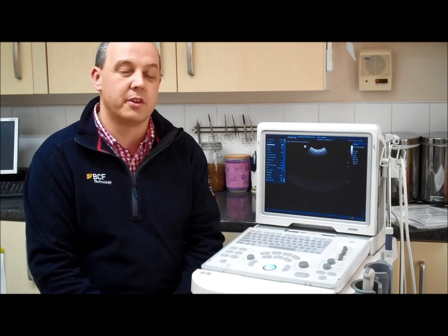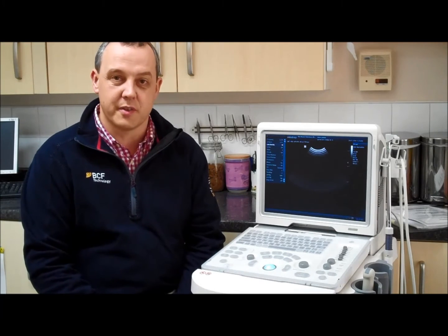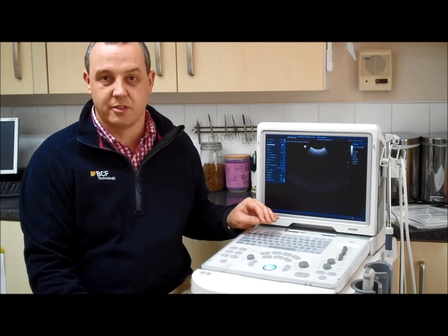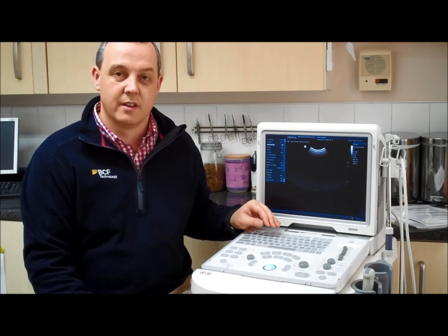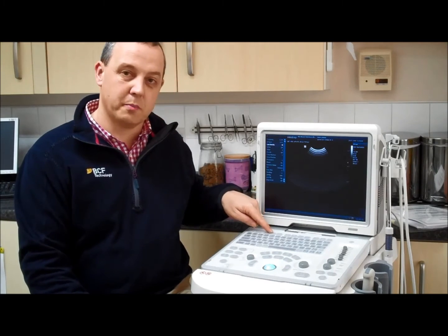The machine is now ready to scan, but it's important to select the right preset before we carry out an ultrasound exam. Different presets will apply to different sizes of animals as well as different imaging modalities. For example, a cardiac scan will be set up differently to an abdominal scan. To select the presets, press the pro button.